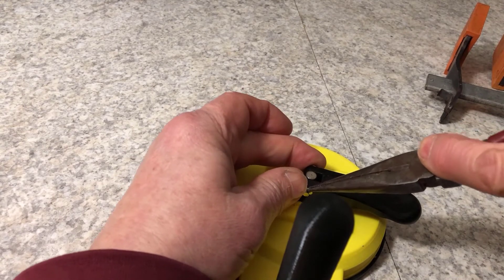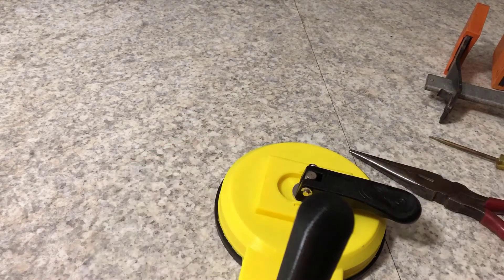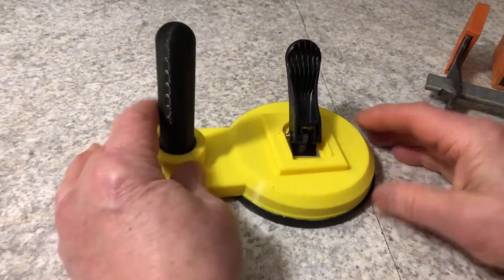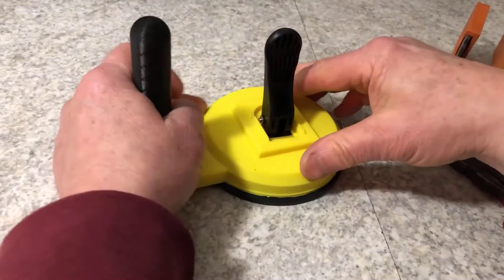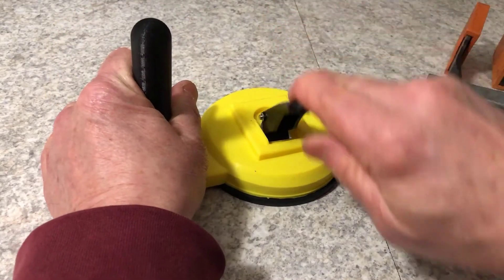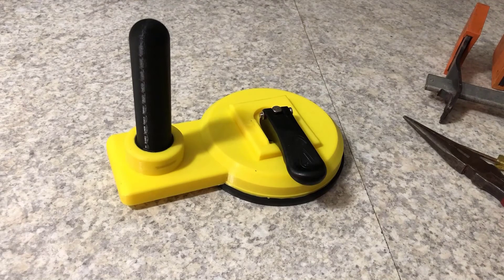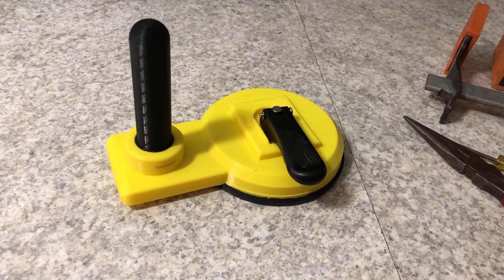Position that baby. Push her down in there. And there we have it. That retaining ring holds it in place. We can clamp her down. We might hold it in one spot. Clamp it down. We have a secure vertical grip support for students that need it.